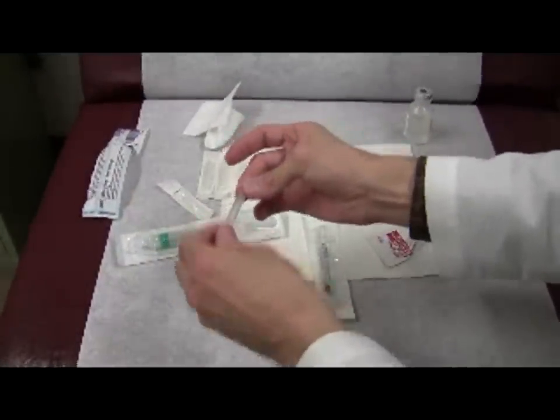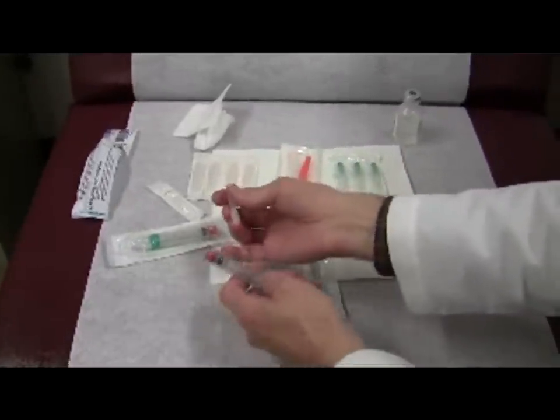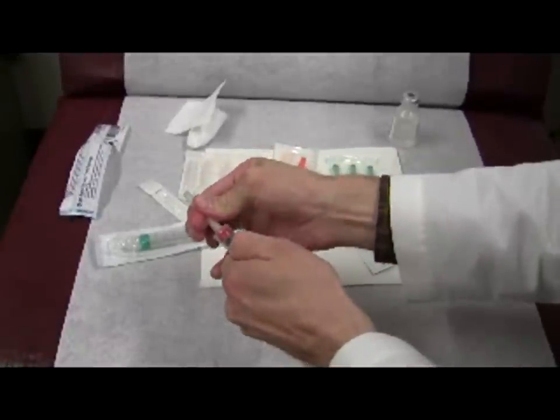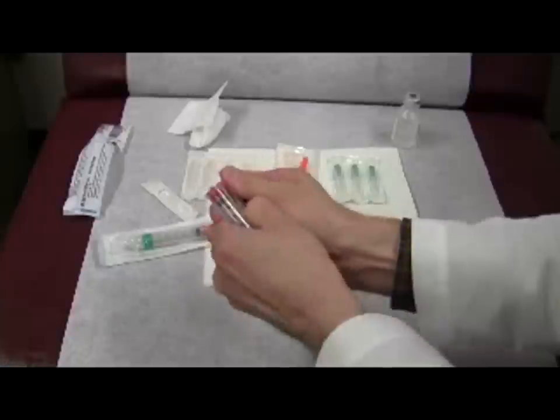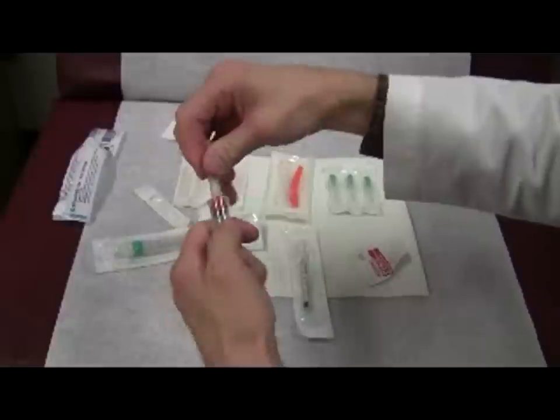This is firmly on, so that's good, but sometimes you have to put it on. When you uncap the needle, make sure you grab the body of the syringe with your left hand. You twist this on — if the cap is not on tightly, when you go to twist it, it doesn't twist effectively.